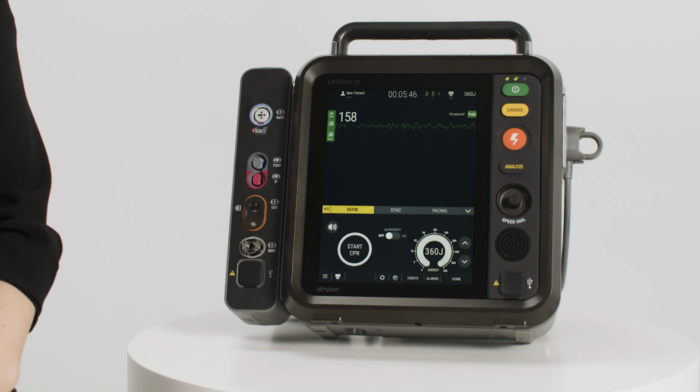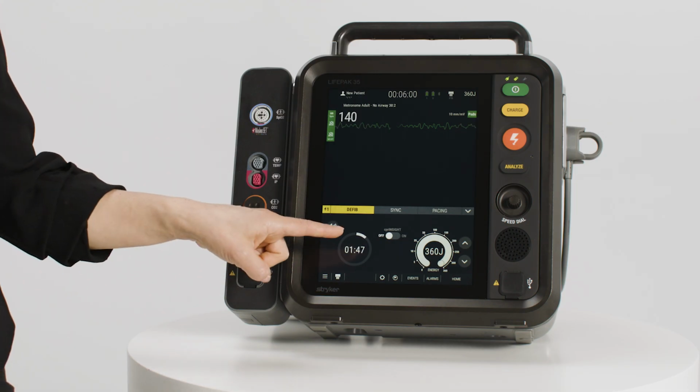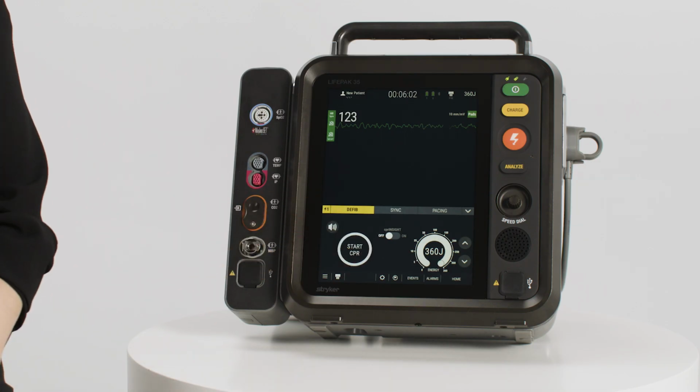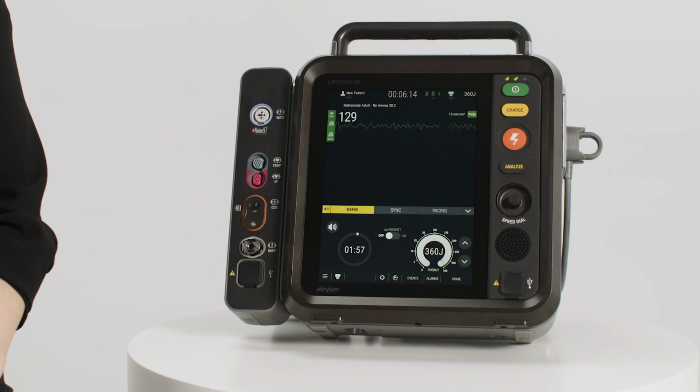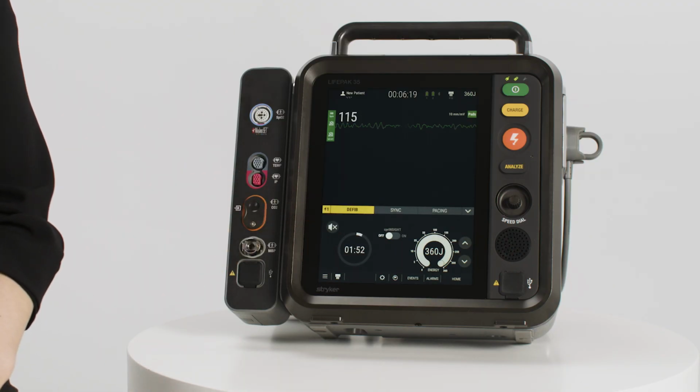To start the CPR timer, press Start. The timer circle and time display indicate the remaining CPR time. Should you need to stop the CPR timer, press the timer circle. Once the CPR timer is stopped, it automatically resets to the default CPR time the next time CPR is started. To mute and unmute the CPR metronome and ventilation prompts, press the speaker icon. It should be noted that muting these prompts will not silence alarms.